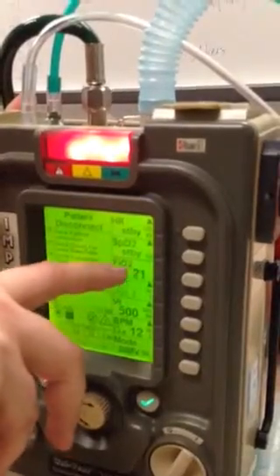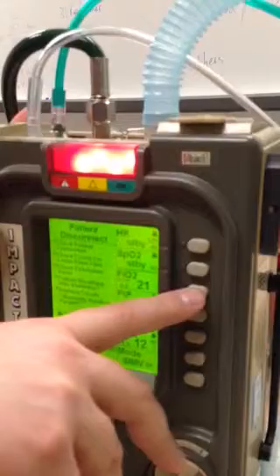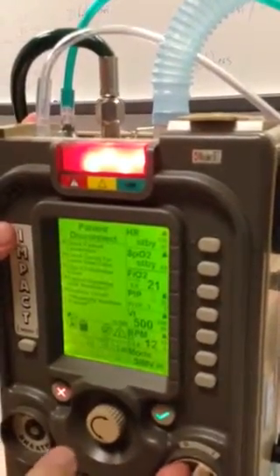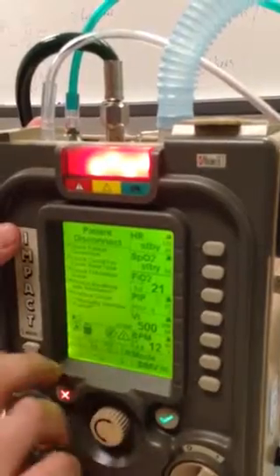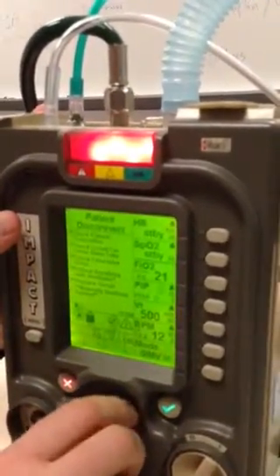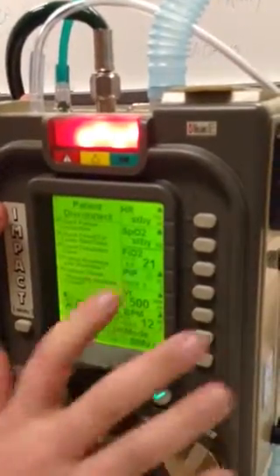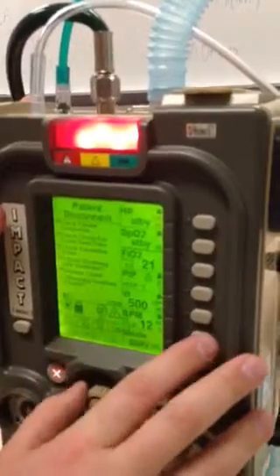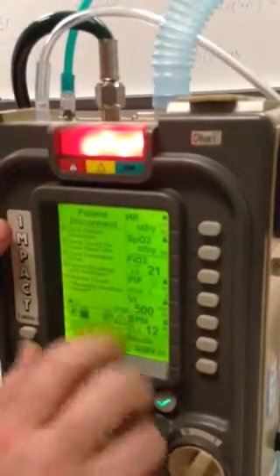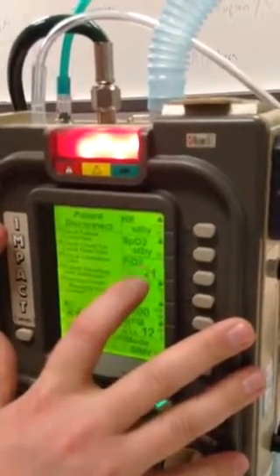Okay. FiO2 can be 21% to 100%. You just need to figure out where to start based on how your patient is being ventilated when you arrive. Okay, and so you would suggest that if we go to a facility, we take their settings as a start point for us? Correct. So all you need is the patient to be oxygenated at 94% SpO2, so you can titrate FiO2 based on their pulse oximetry.